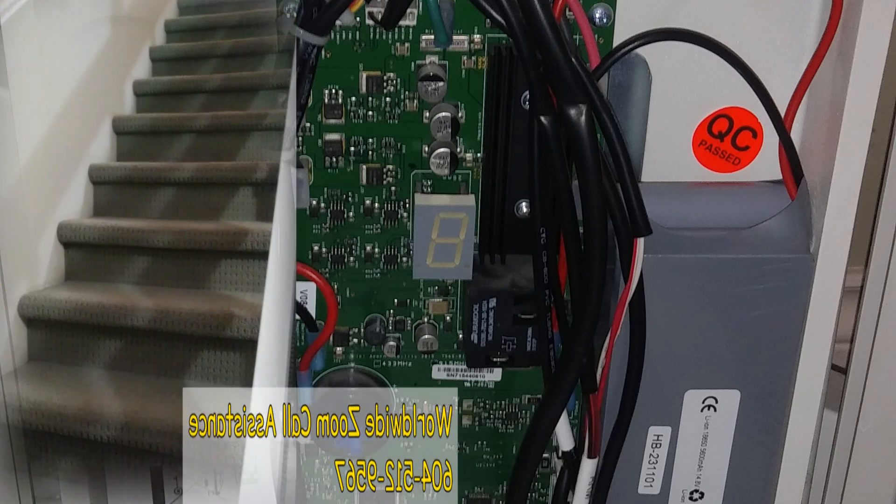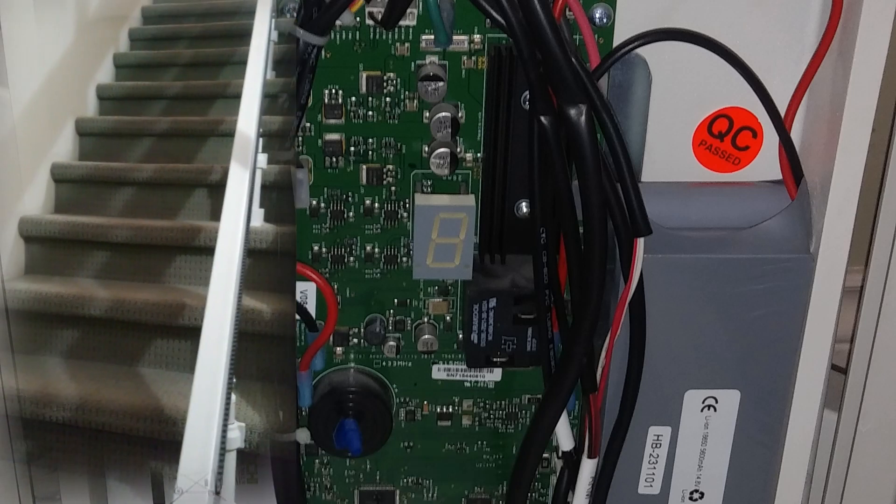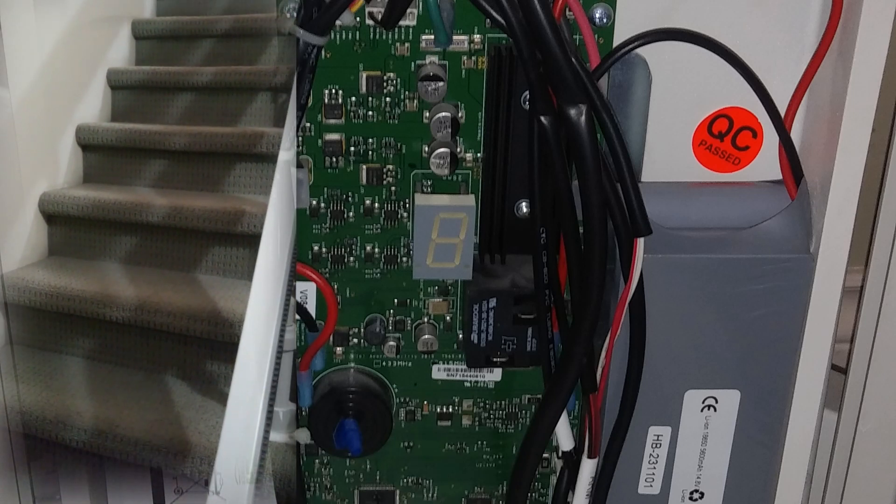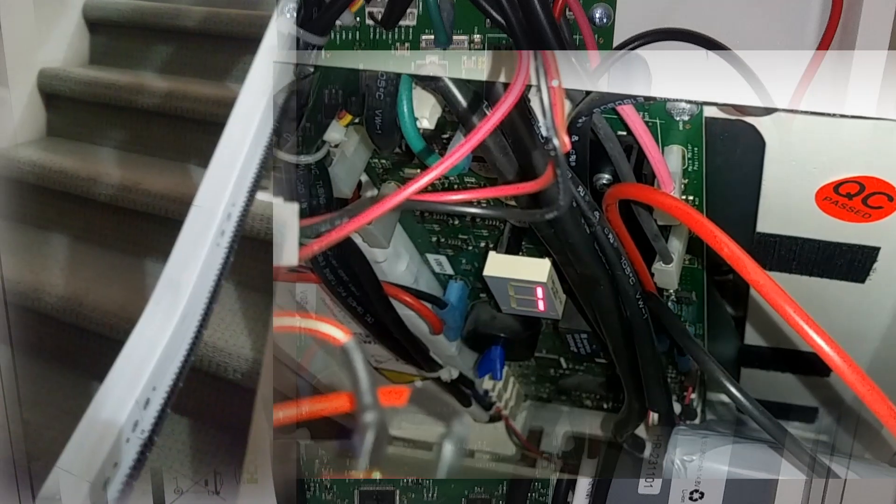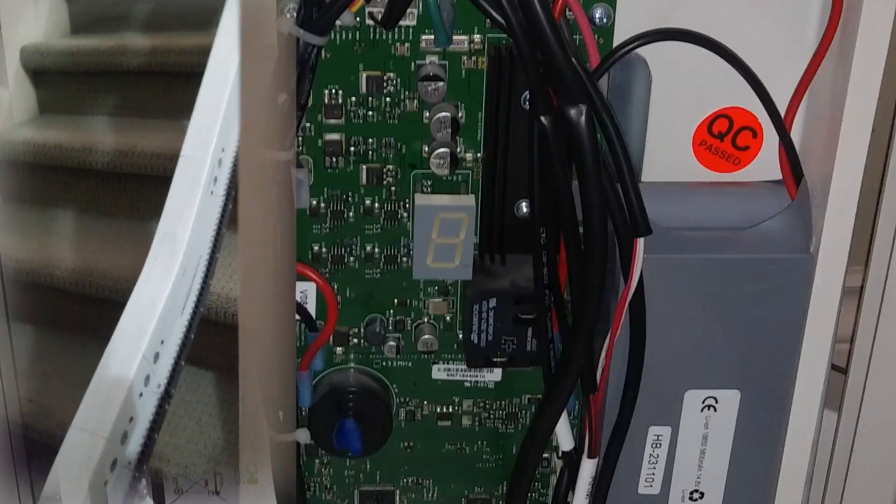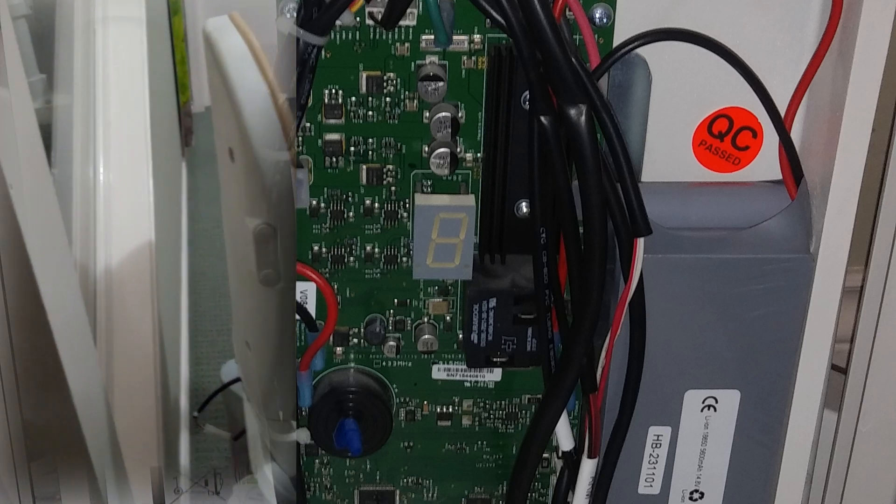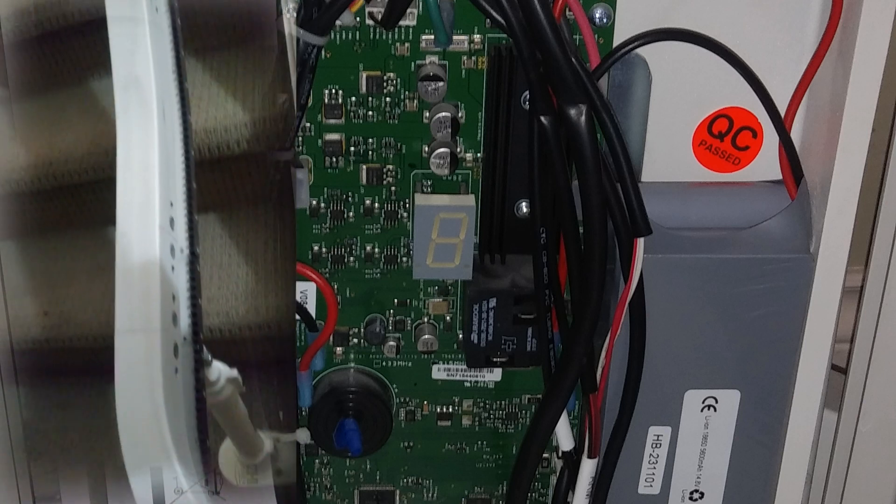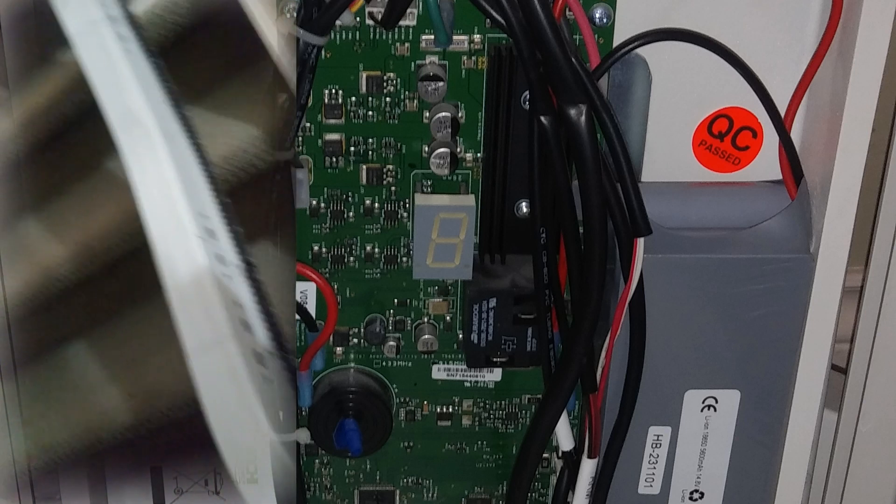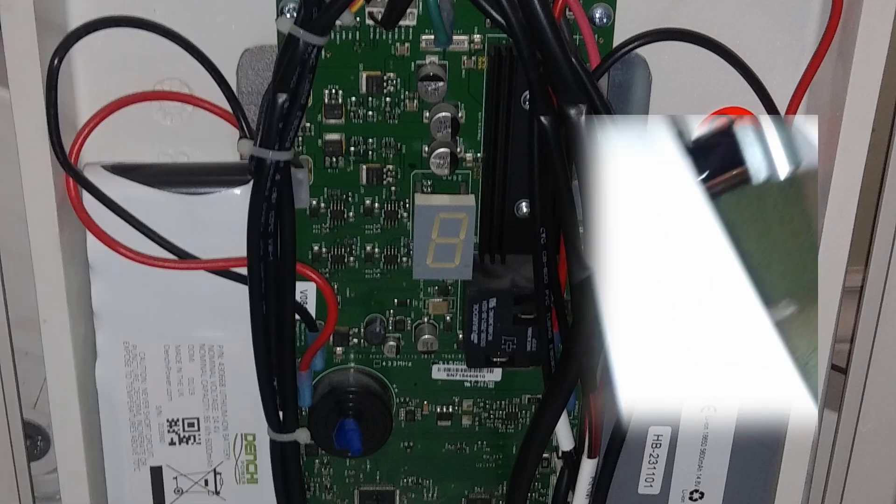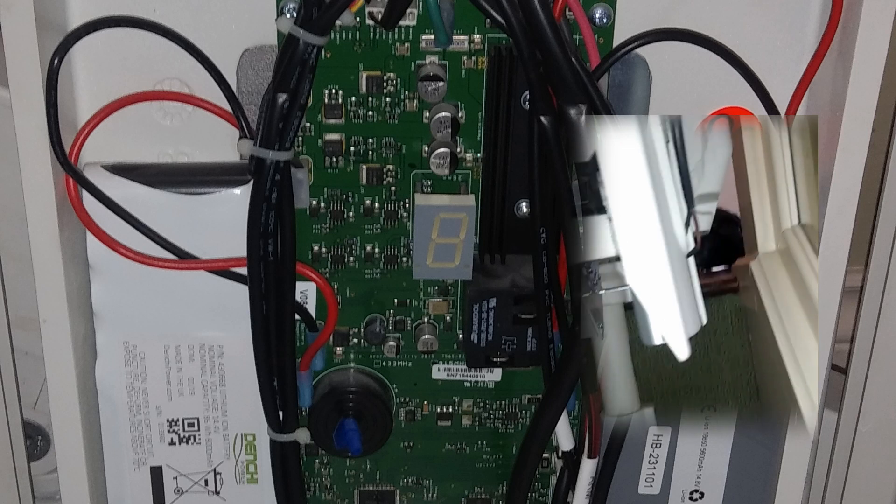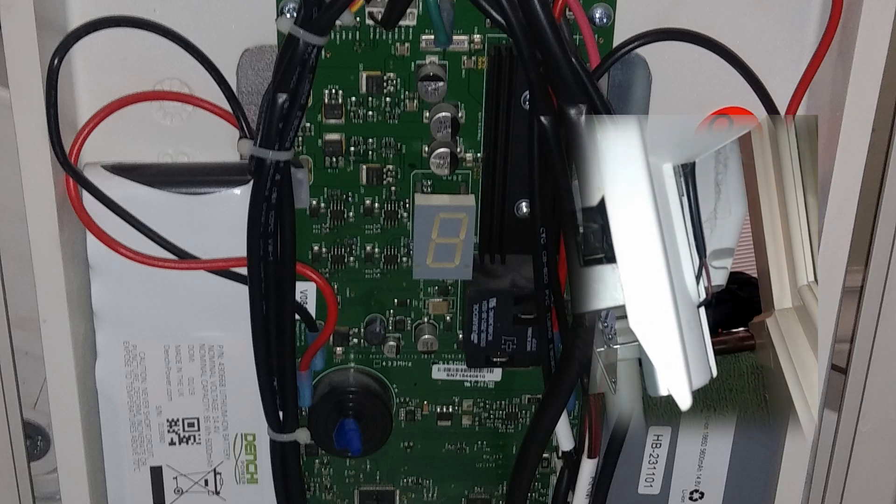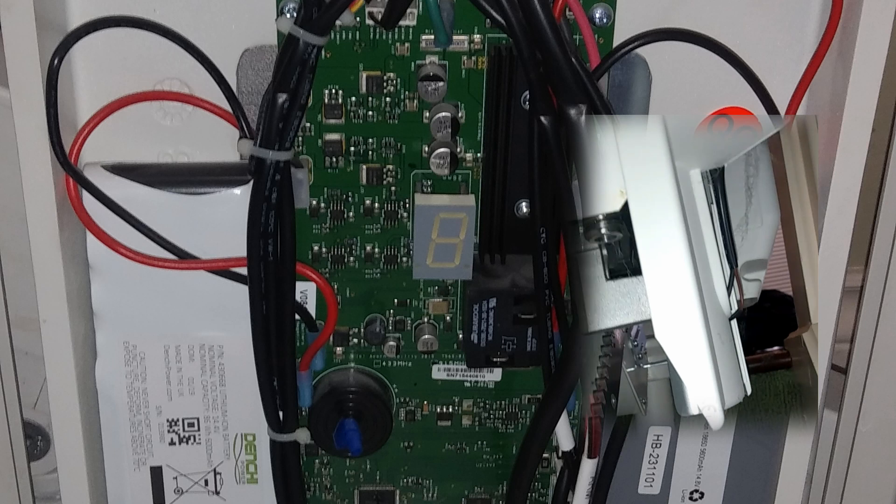The problem for do-it-yourselfers is that once they've gotten hold of some version of the stairlift, they think it's going to work. But I have now worked on six different versions of the model 180. I'm going to give you this helpful warning and caution that using the wrong instructions will result in serious damage to the stairlift.